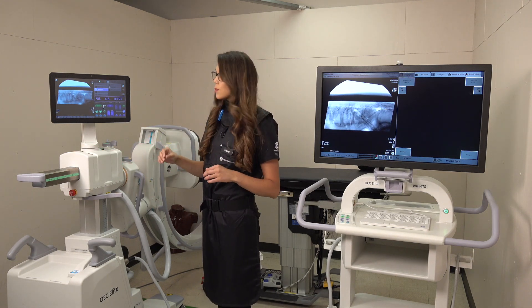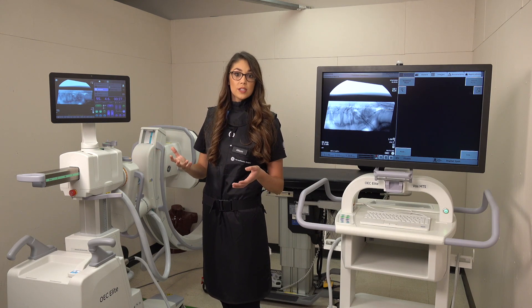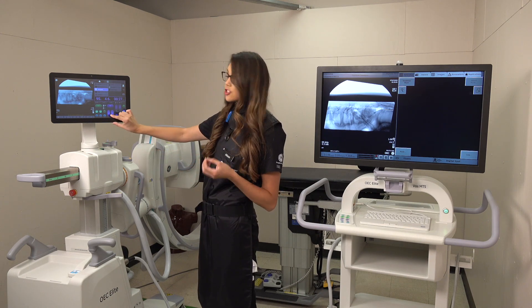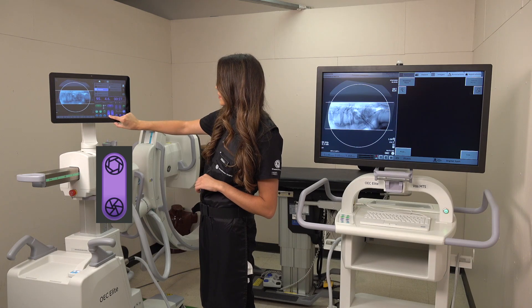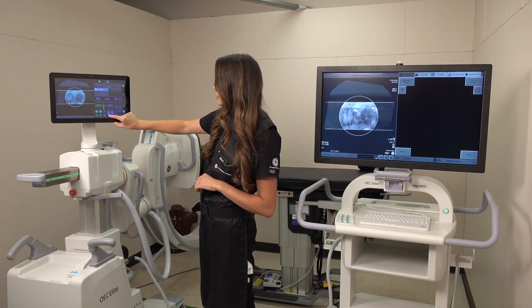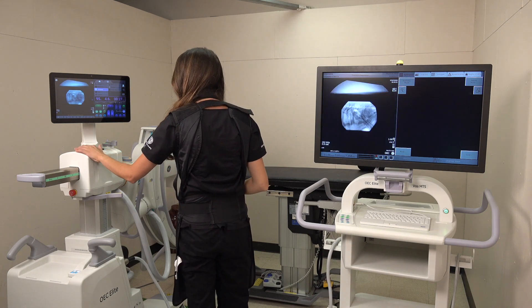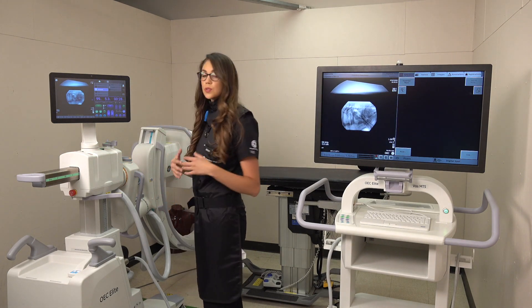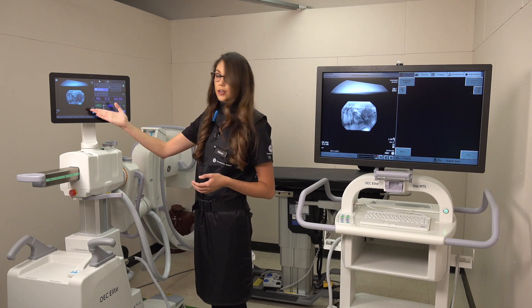Now let's say we wanted to use our iris collimation — you can actually use both at the same time. To engage that circle or iris collimator, you hold down in the middle here until we're right around our field of view. Once we take our new picture, you're good to go.